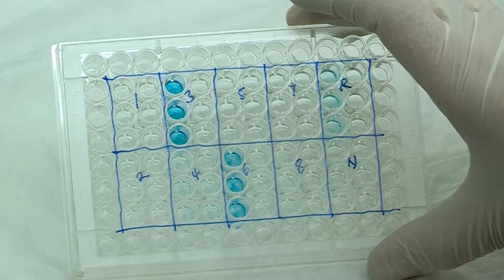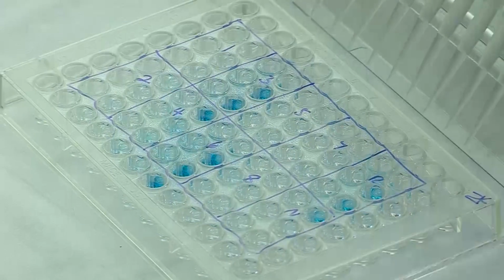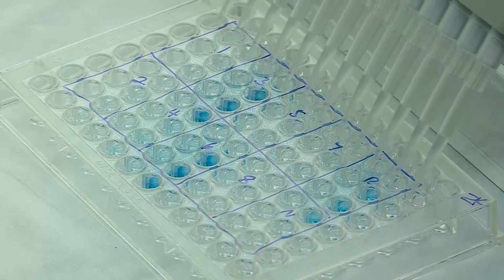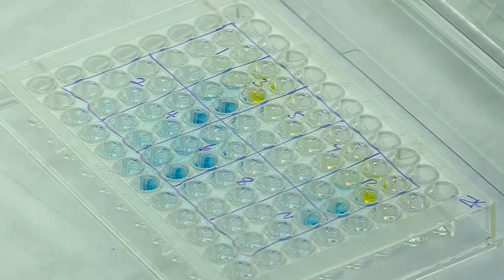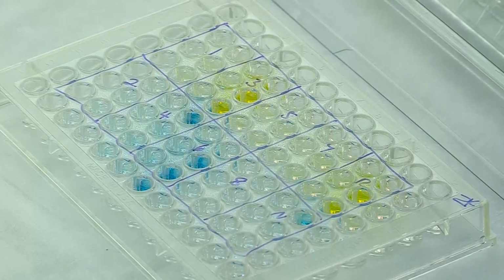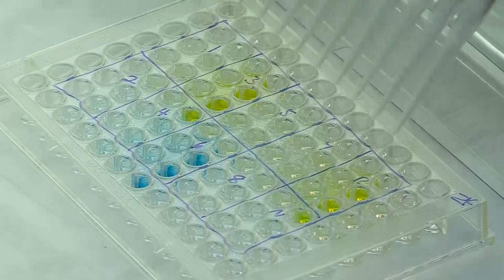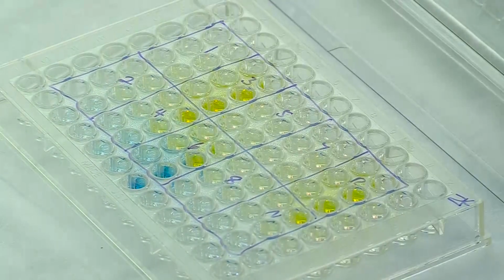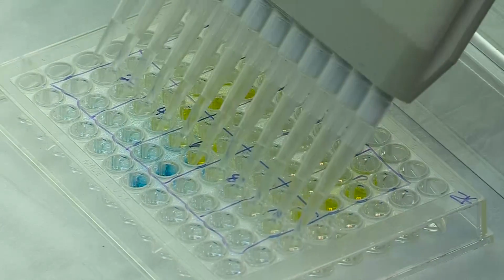After 10 minutes, add 50 microliters of 1 normal sulfuric acid to each well to stop the reactions. Non-EUA labs can use 75 microliters of TMB stop solution to all the wells instead. Also add stop solution to 1 or more wells on the outer edge of the plate to use as blanks.